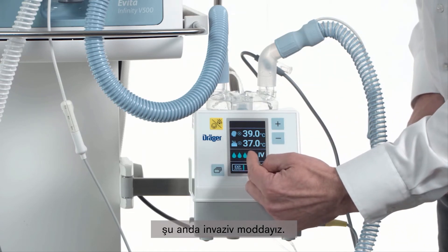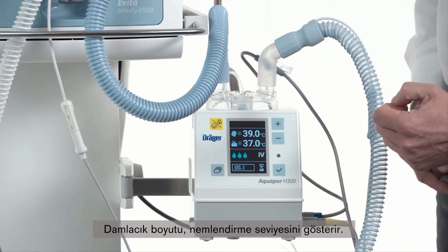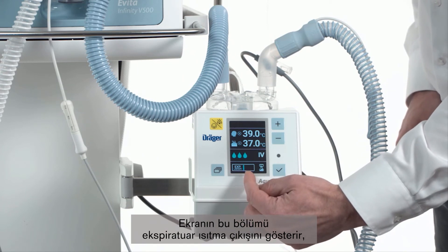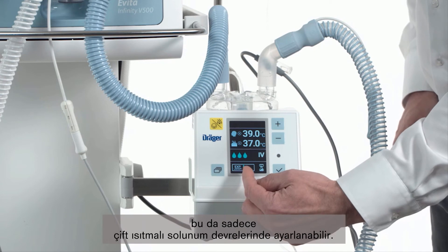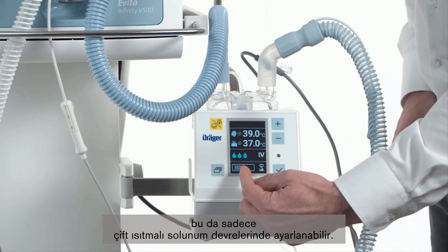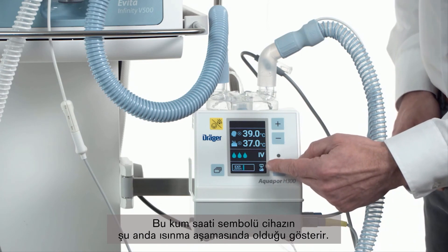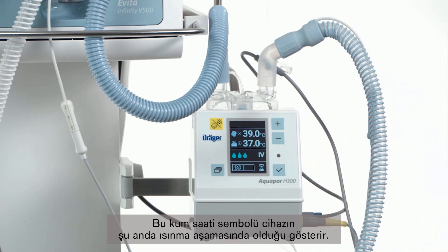The droplet size shows the humidification level. This section of the display shows the expiratory heating outlet, which can be adjusted in dual heated breathing circuits only. And this hourglass symbol shows that the device is currently in the warm-up phase.